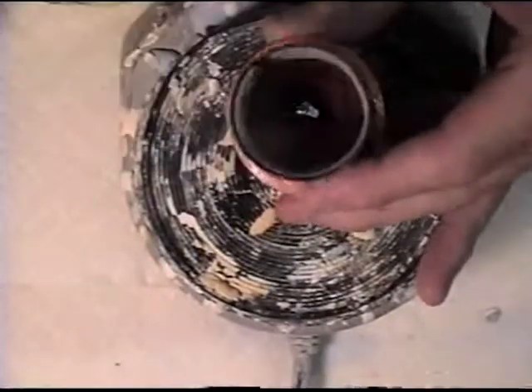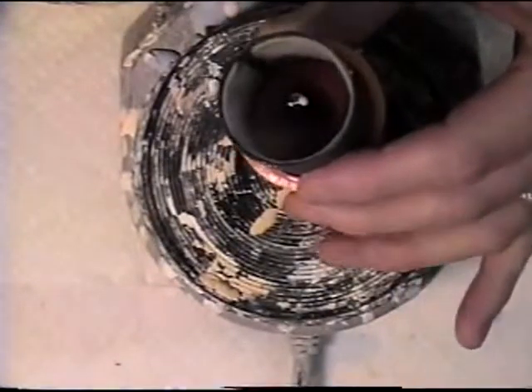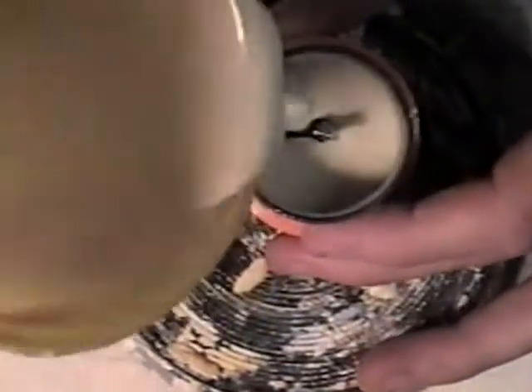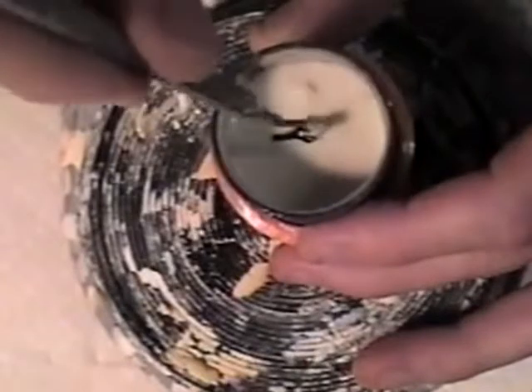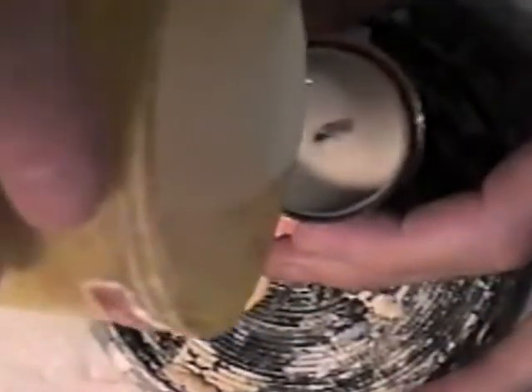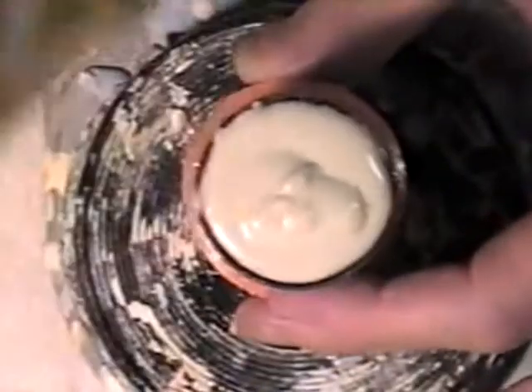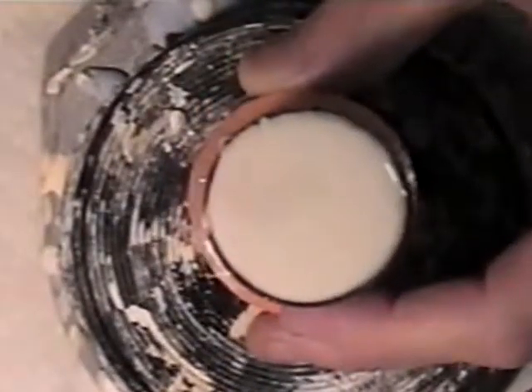I can place my ring on it this time. Fill the ring up. I'm not on the vibrator right now. I just fill it up to that point. I'll just set this somewhere else where it will not be disturbed.